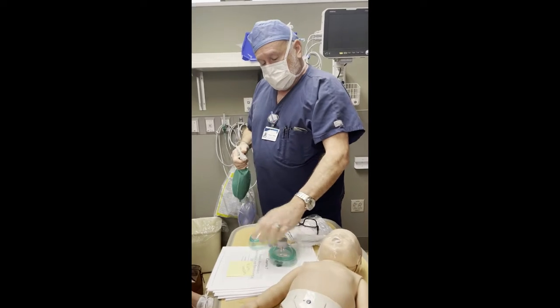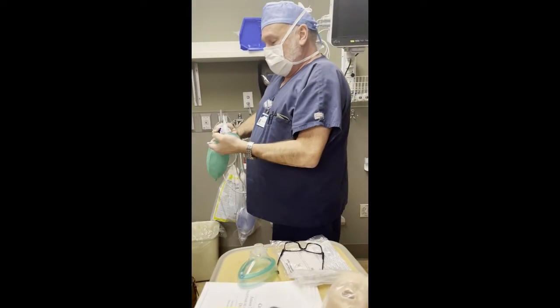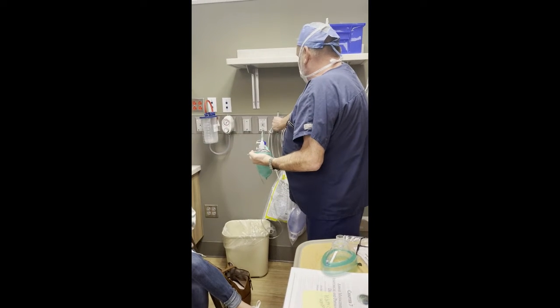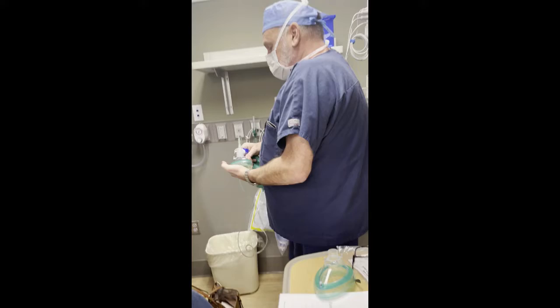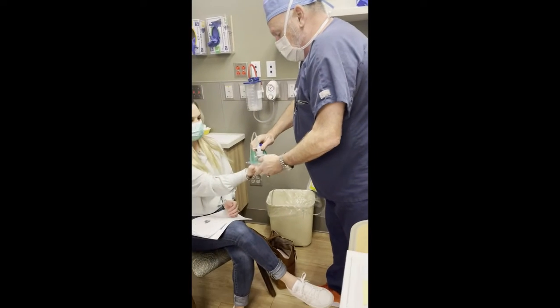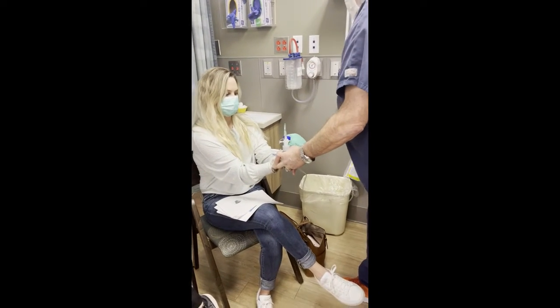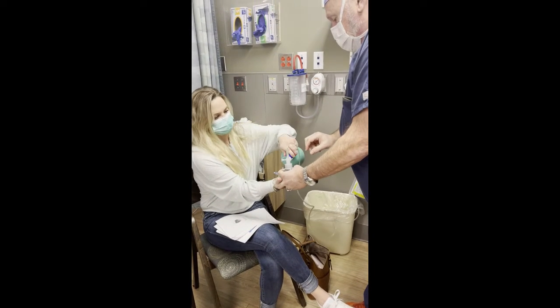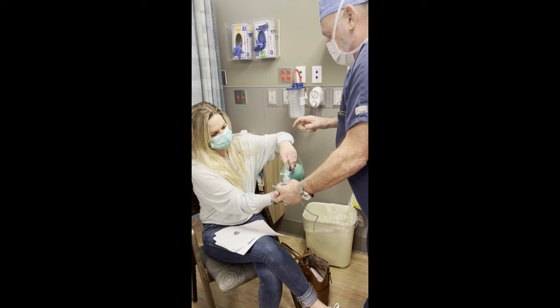So instead of an adult mask, obviously you have a child's mask. So you can put this in your hand, kind of hold down on it. I'm going to close this off and let you feel how this feels. Put that on your hand. Push down tight. Now take your other hand. Open and close this valve. So you see how you open and close it?